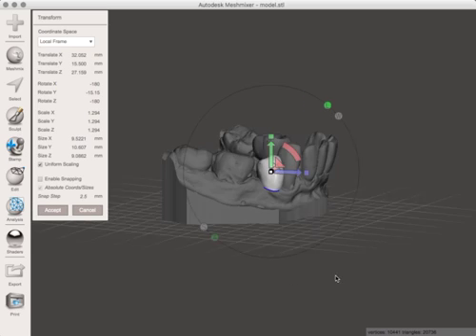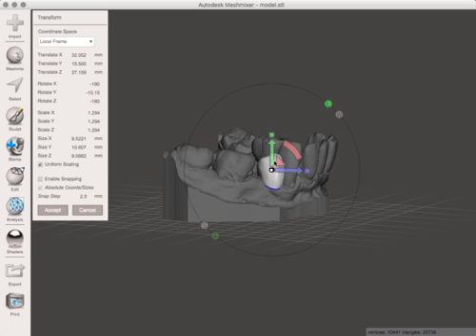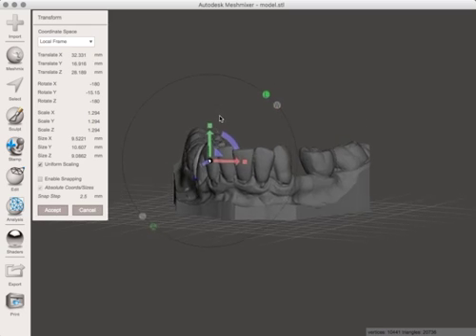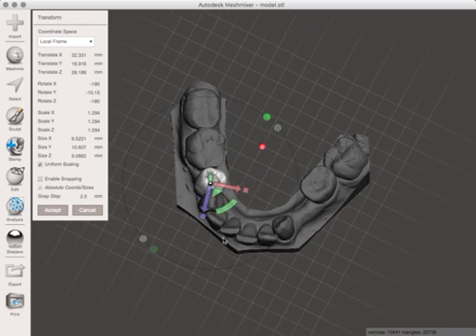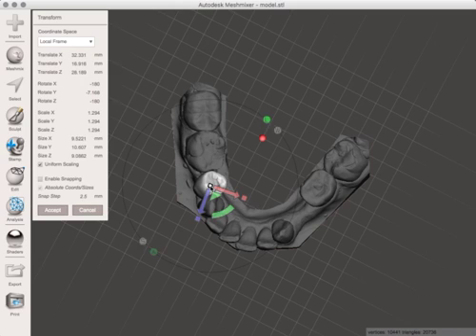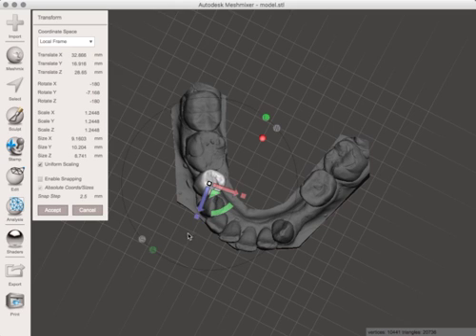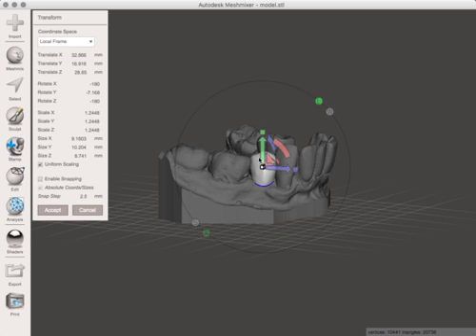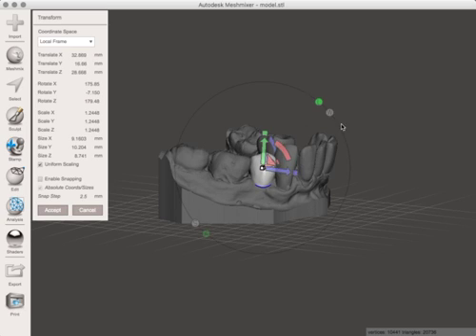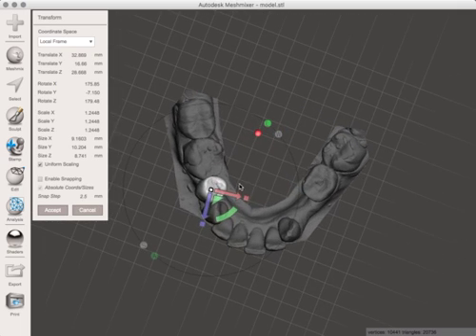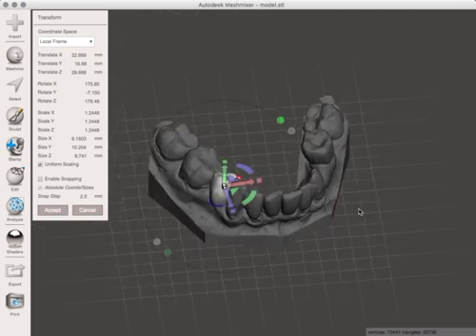You can see how quickly you can set teeth. Once the tooth is where you need it to be, you can do whatever you want with it, whether it's fabricating a surgical guide or printing off a 3D model to use for an interim.